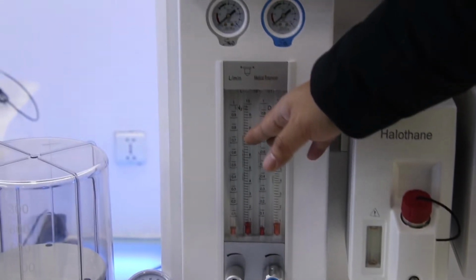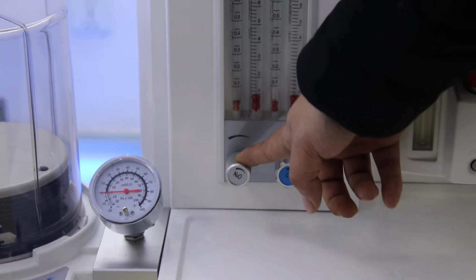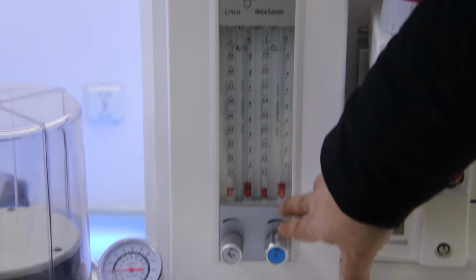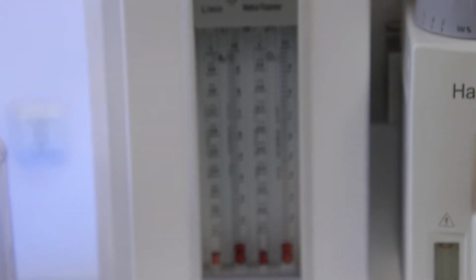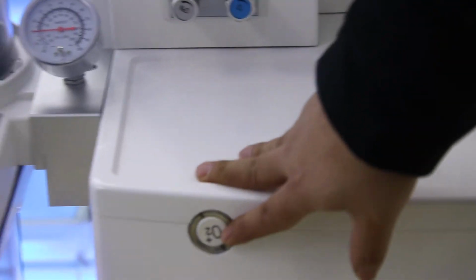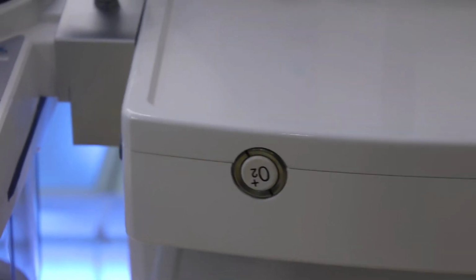And here we see the flow meters. As I mentioned, we can choose oxygen, which we must have. For the nitrous oxide, we can change it to air. But no matter which gas source, there are two tubes for each. You can see each one goes from 0.1 to 1 and also 1 to 10. It ensures you can set the parameters very accurately. And here is the rapid oxygen supply. This button is usually used in some emergency situation, or after the patient use, when we need to recover the patient soon, then we will use this button.